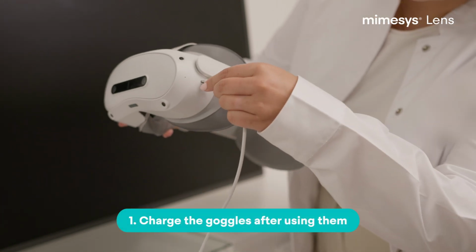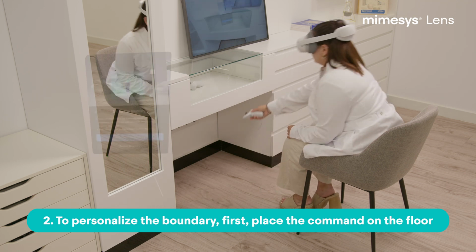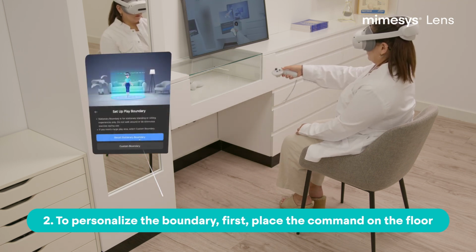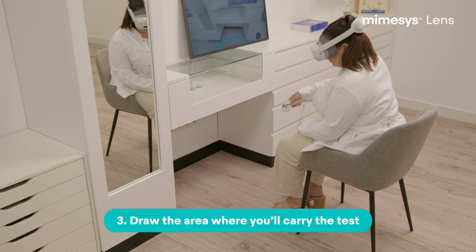Remember to charge the goggles after using them. Place the command to the floor if you have selected to customize your boundary area. Draw the area where you are going to carry the test with the command.